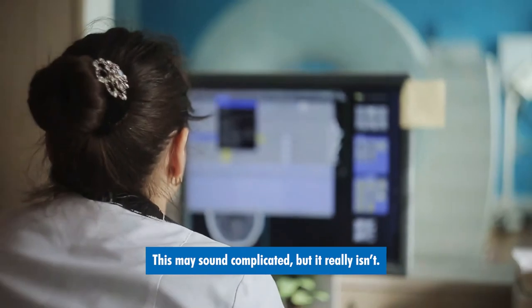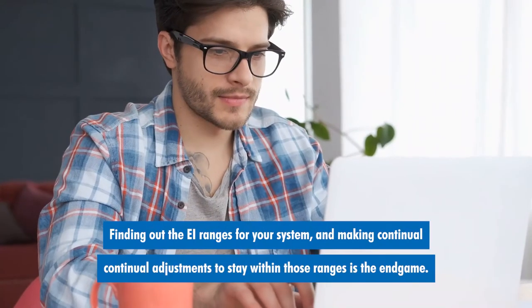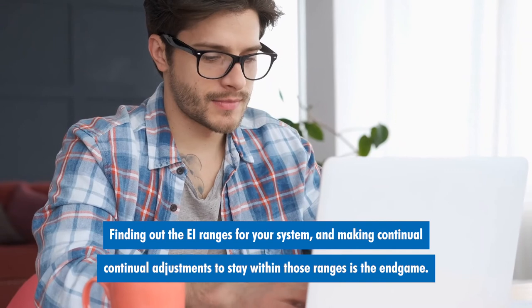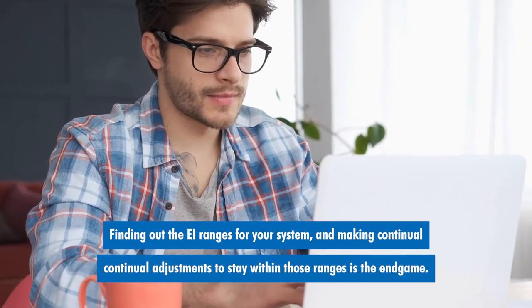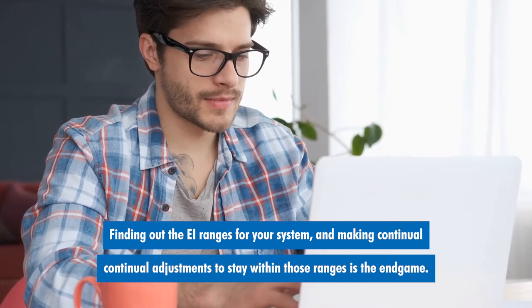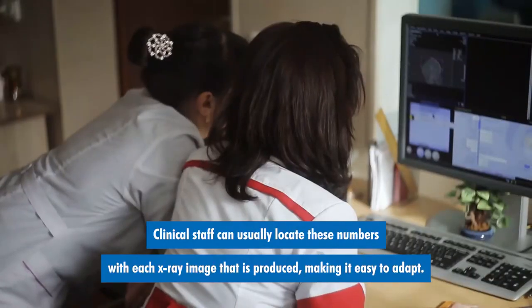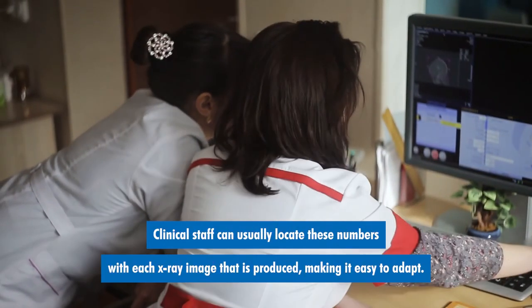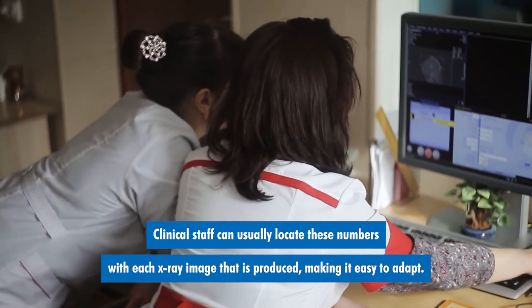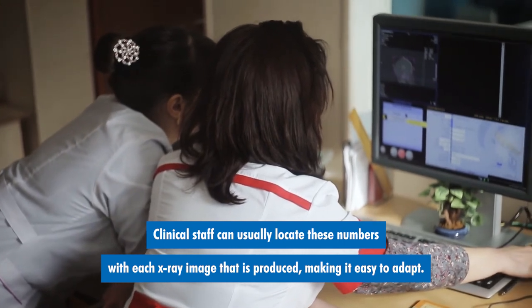This may sound complicated, but it really isn't. Finding out the EI ranges for your system and making continued adjustments to stay within those ranges is the end game. Clinical staff can usually locate these numbers with each x-ray image that is produced, making it easy to adapt.